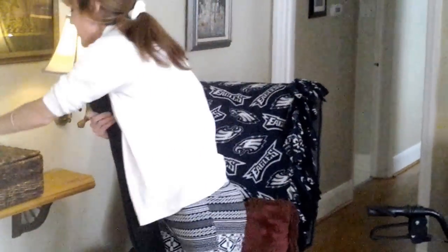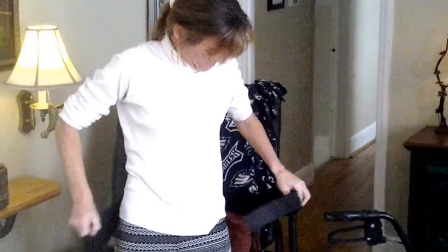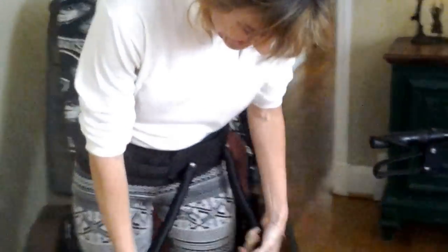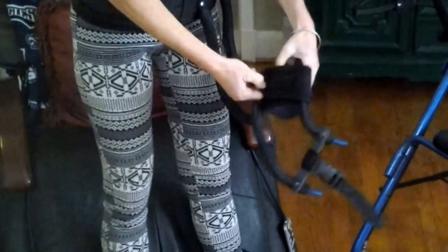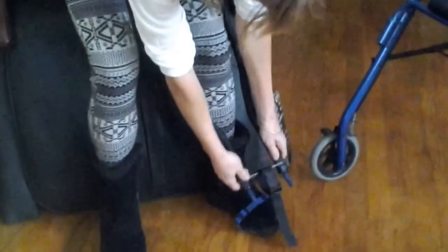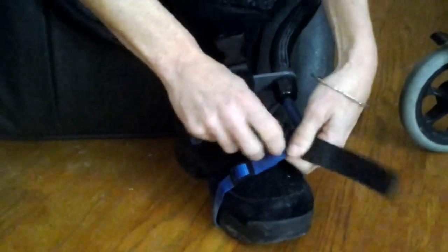Okay, this is the device. I'm going to pick up my reading glasses. What you do is put it around — I like to put it low on my hips — and then you strap it in like that. This part is for your knee. And to set it up for your ankle and foot drop, you unstrap this part and hook it right through here.